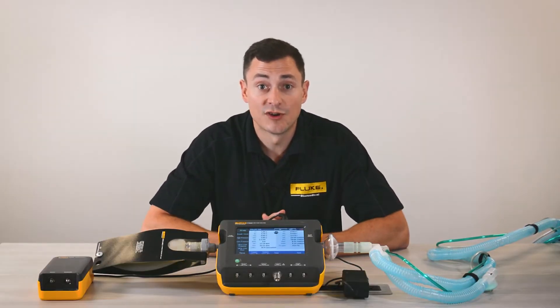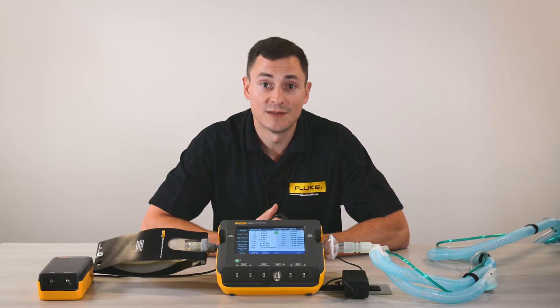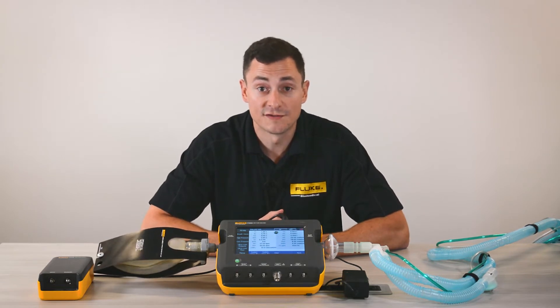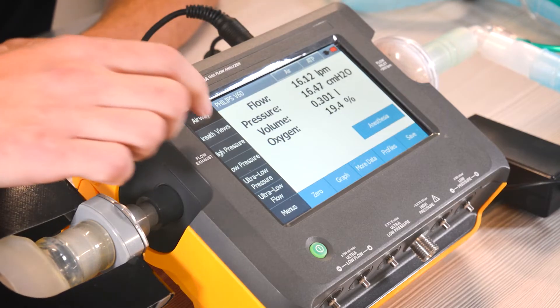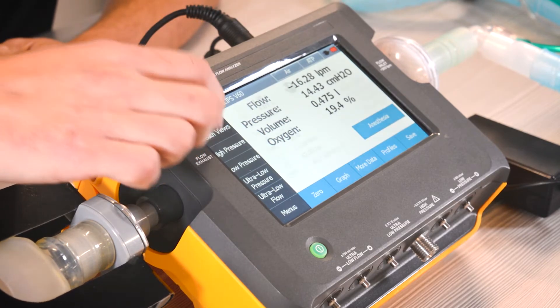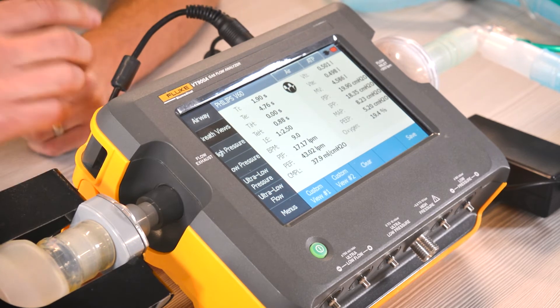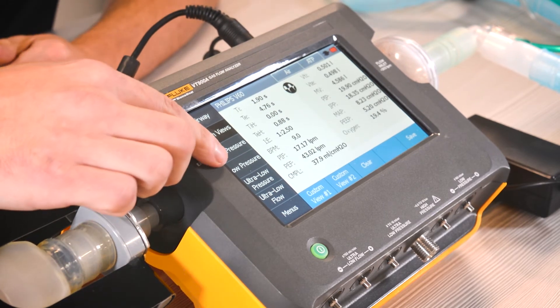As we move to breath views, there are 16 breath parameters that are measured on one screen. As we look here, we can see that your I to E ratio is calculated, so you can get rid of that meter.